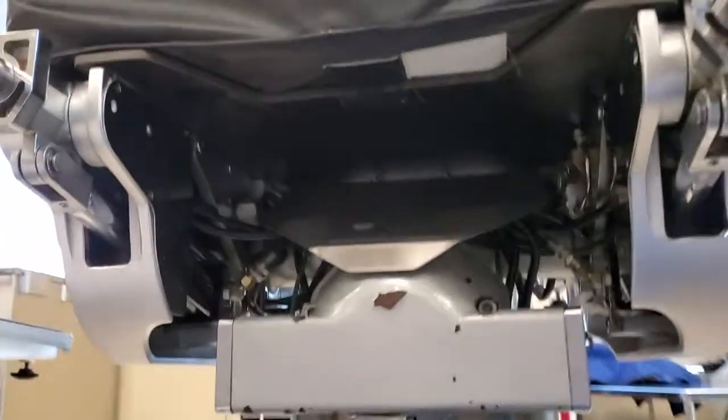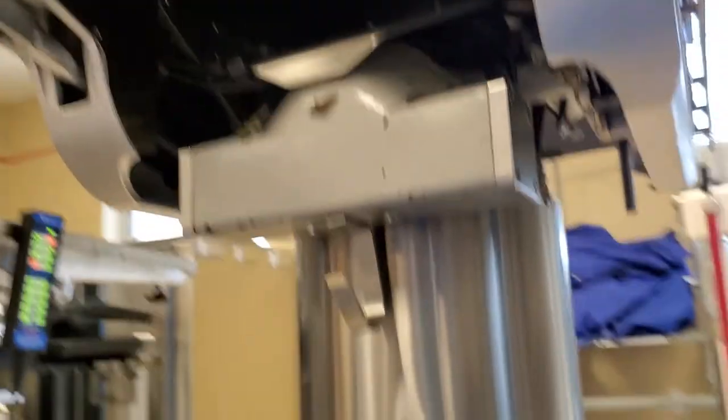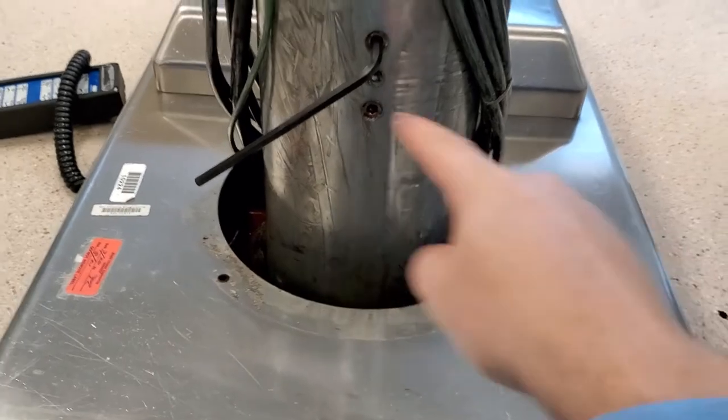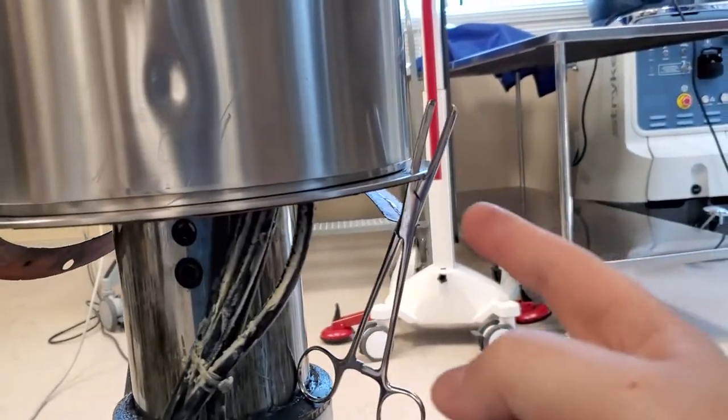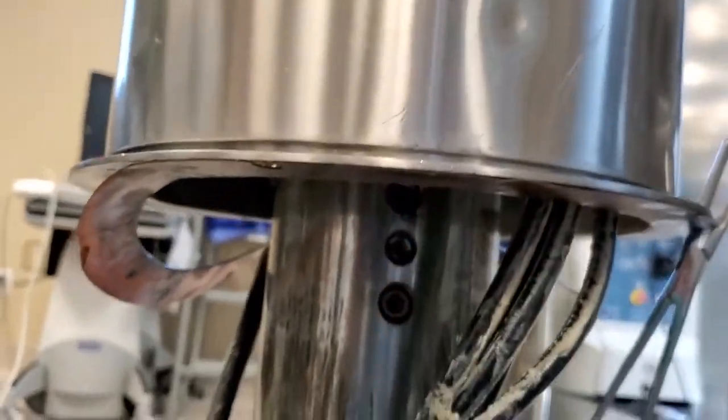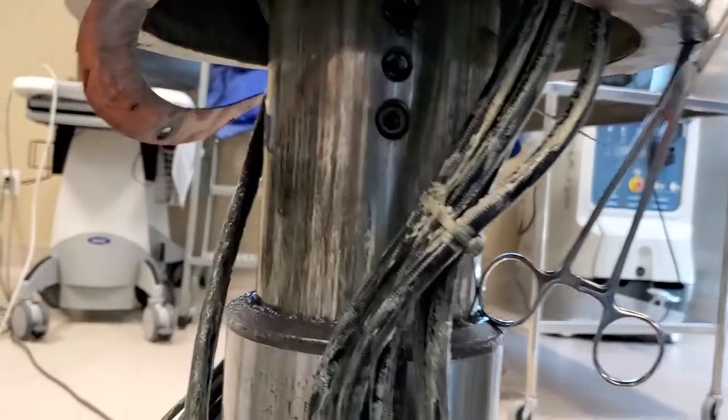Alright, this is the 6700, and you can see I've got it all the way up. There's four screws around the collar, and you can see I've got a set of hemostats clipped on just to hold it up. I am aware that this guy's kind of heavy, and my hands aren't going to be in there goofing around very much.